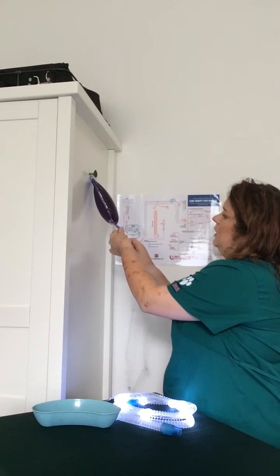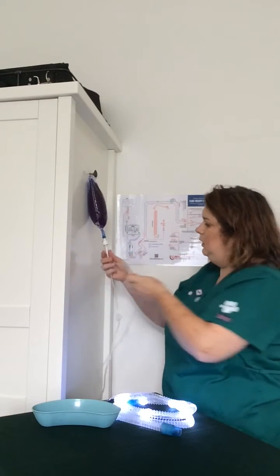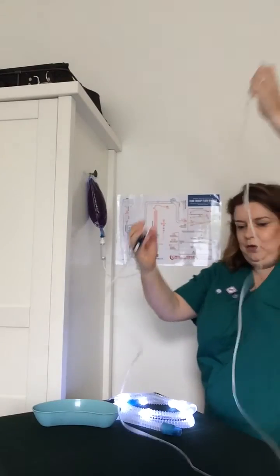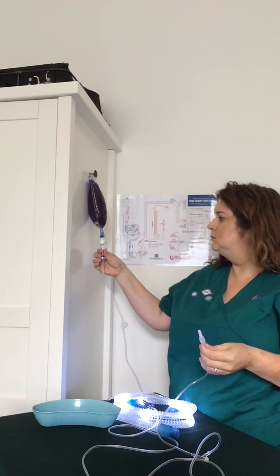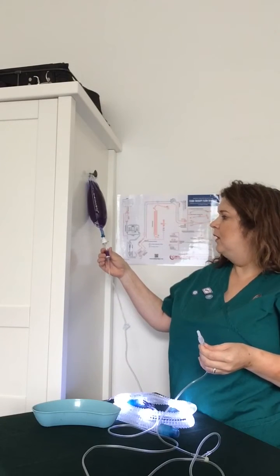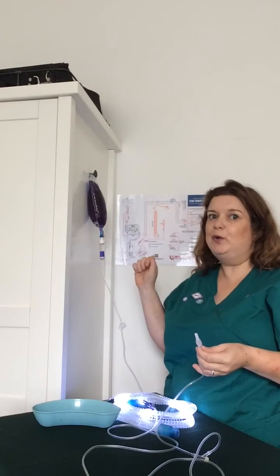One, two, three — this one's going to need another half. I'm going to put this on here so you can see. I'm going to squeeze. So that's taking three squeezes to get about half full. Two thirds full is where you want to be.